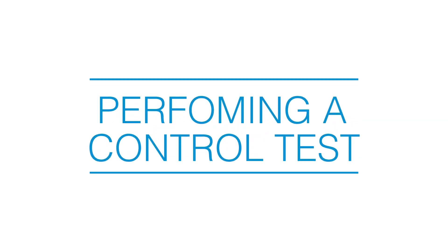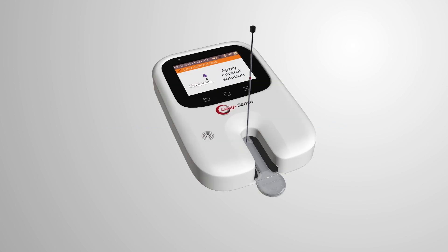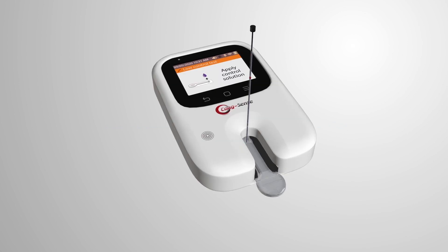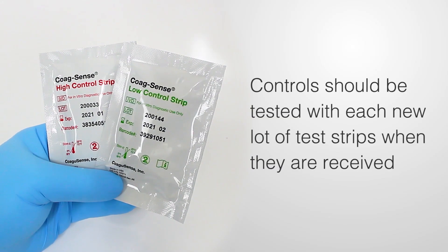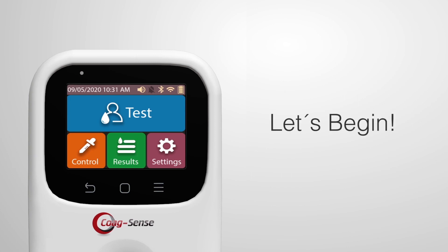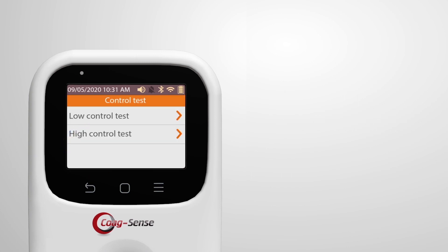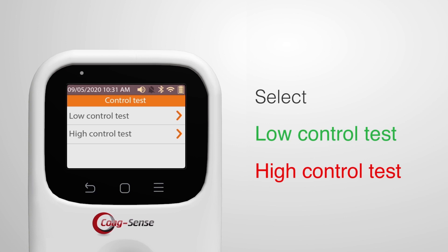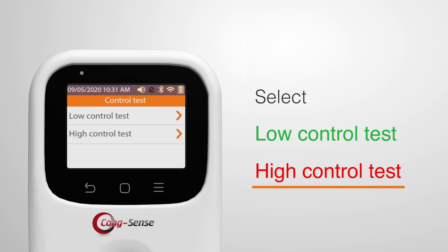This video provides a brief overview of how to perform a control test. Controls should be tested with each new lot of test strips when they are received. Press the control icon on the display and select from the following two options as applicable: low control test or high control test.